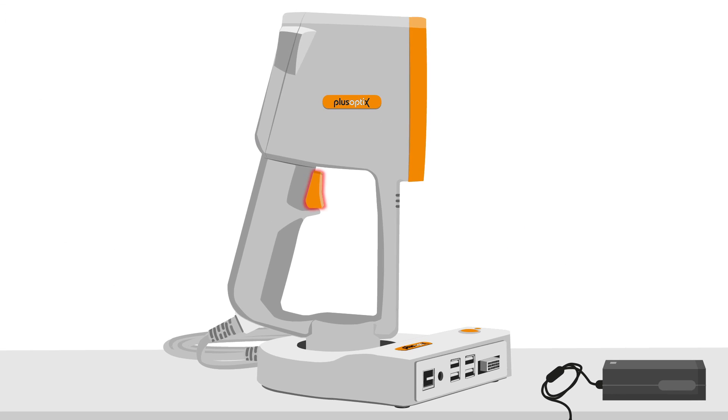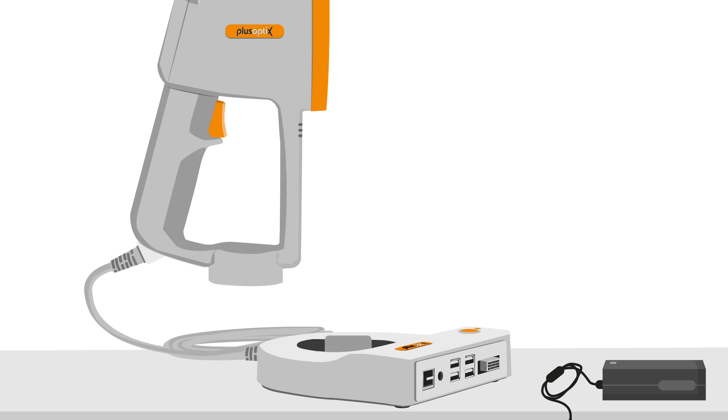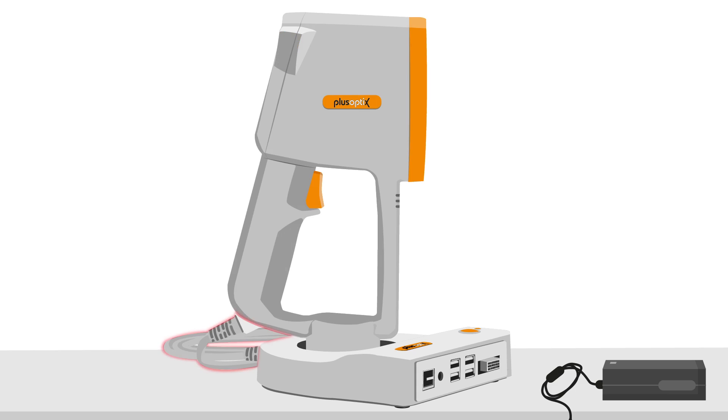The shutter button is the large orange button located on the device handle. The fitting of the measuring head to the cradle is integrated in the handgrip, so that the measuring head can be mounted quickly and securely from any direction. The cable between cradle and measuring head is arranged on the back side of the cradle, so that the cable can be laid outside of children's reach.